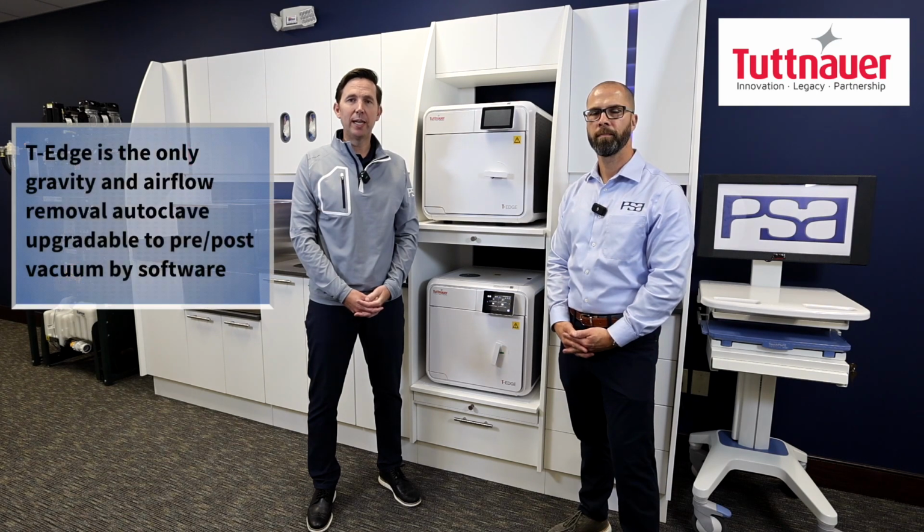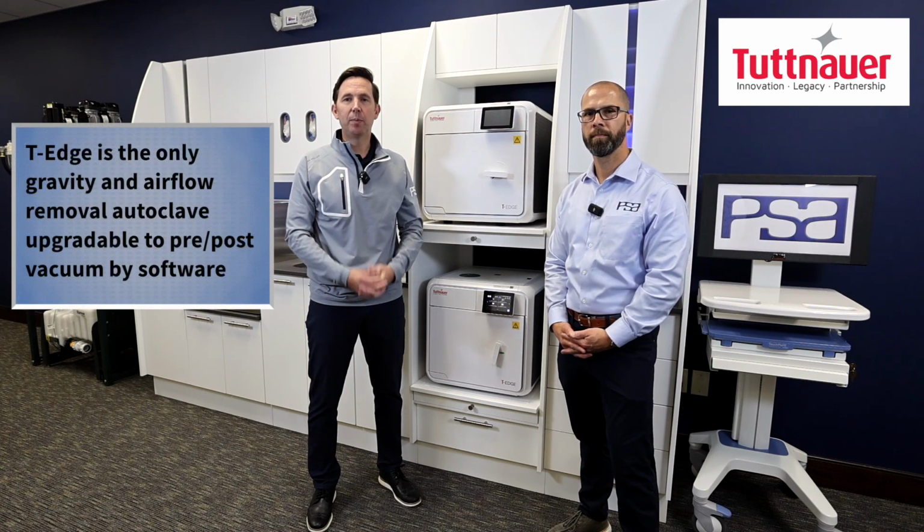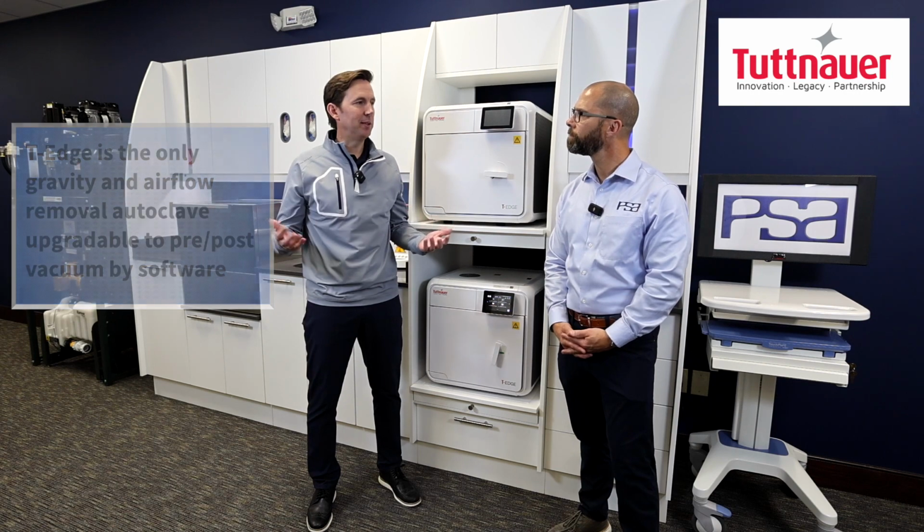T-Edge was launched 5 years ago and has been one of the most significant complements to Tuttnauer's portfolio since then. The significance of the T-Edge is the capability of running Class S and B cycles. So when an office looks to purchase, they can purchase it as a Class S sterilizer. And then if they're ever required or compelled in the field, all that it requires is a software upgrade to then give you the option to run a Class B cycle. But what is a Class B cycle?